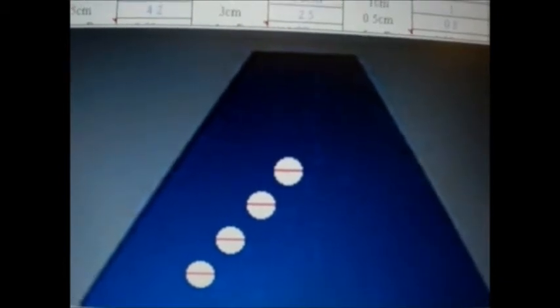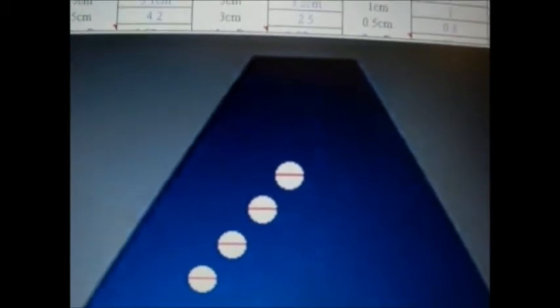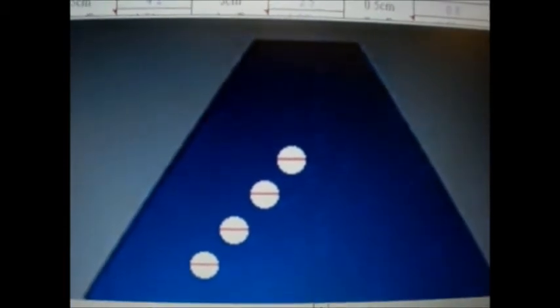While, in addition, also annotating the clearness and the contrast of the image: fuzziness, is it distorted or dark colored.